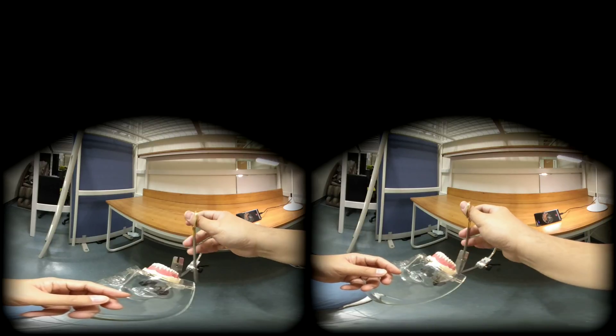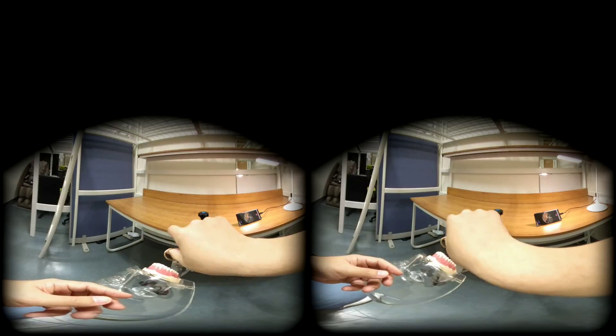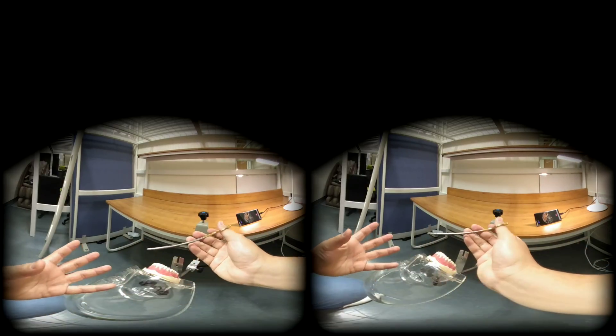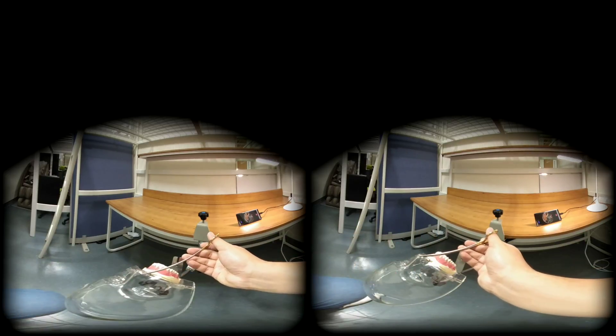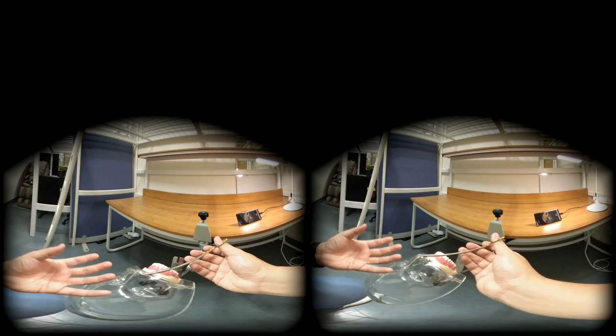As you can see, it moves in this direction. It can rotate, it can rotate back, and you can step. Literally everything is possible with this grip. Especially your elbow and shoulder are at the rest position, and it is a very ergonomically convenient hold.